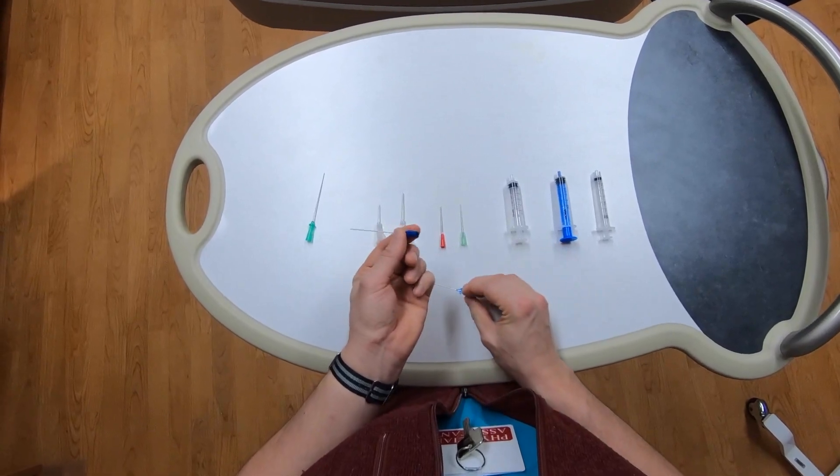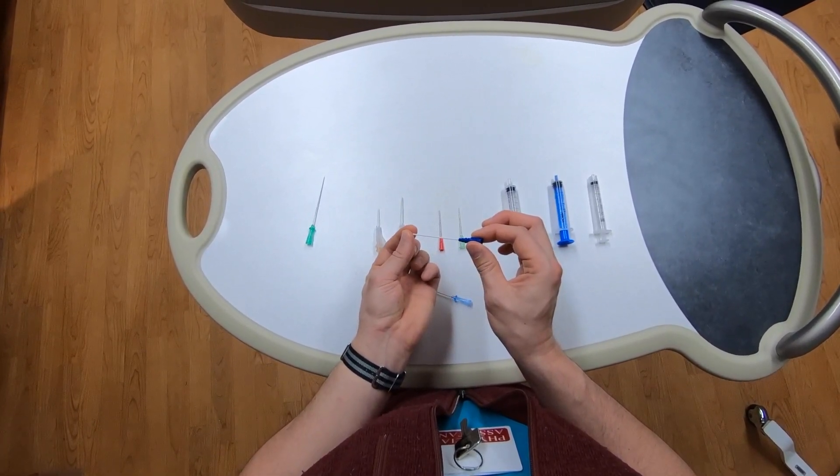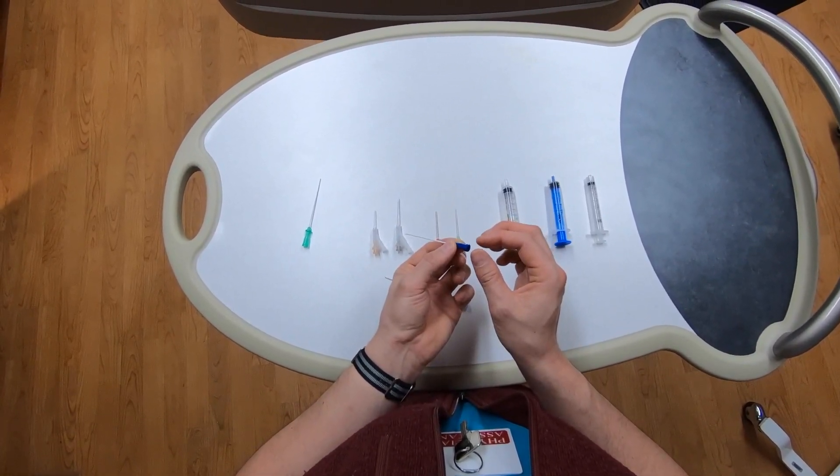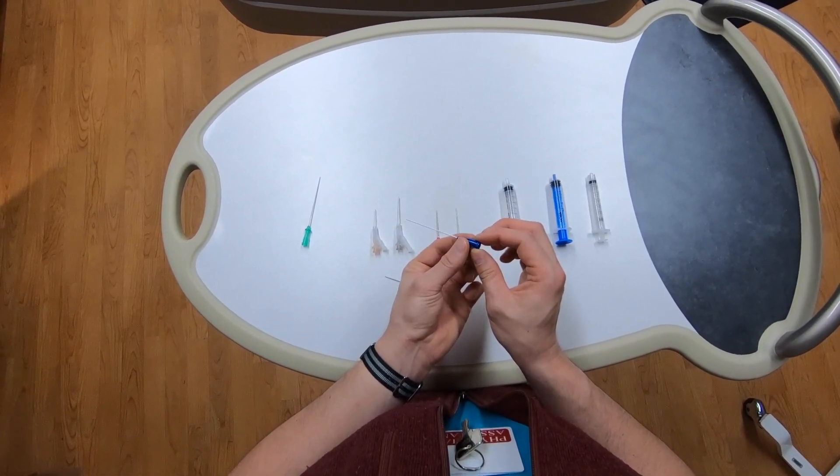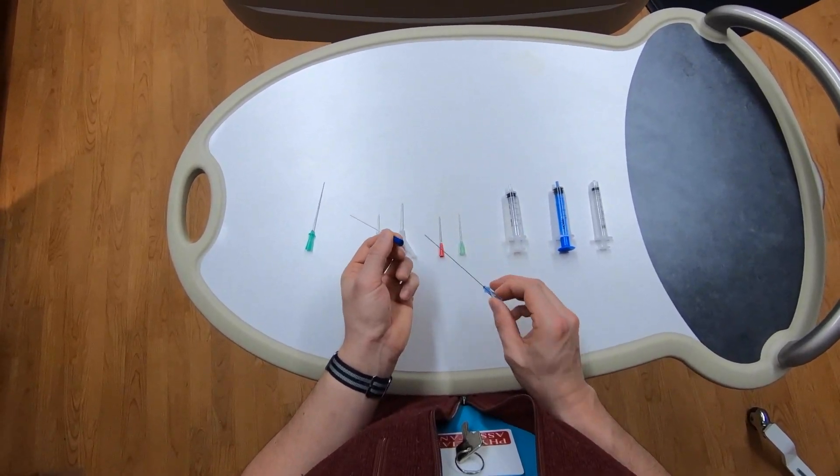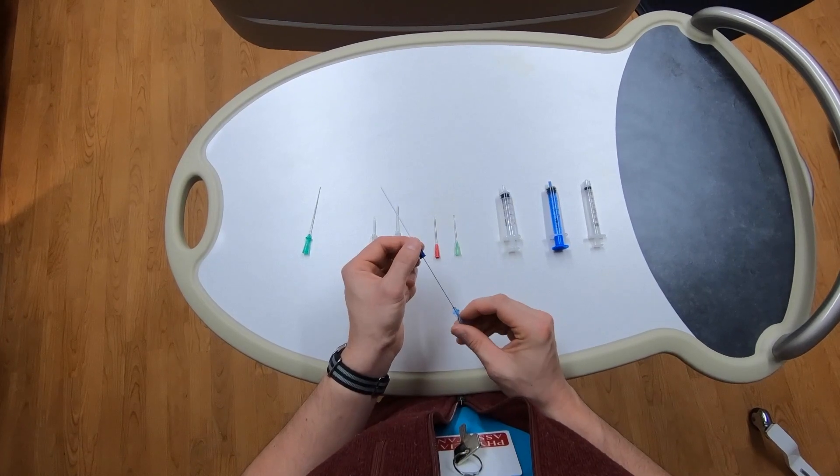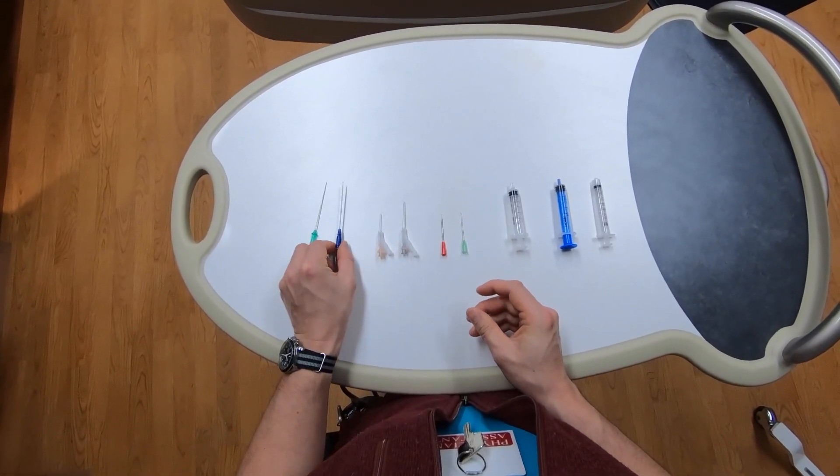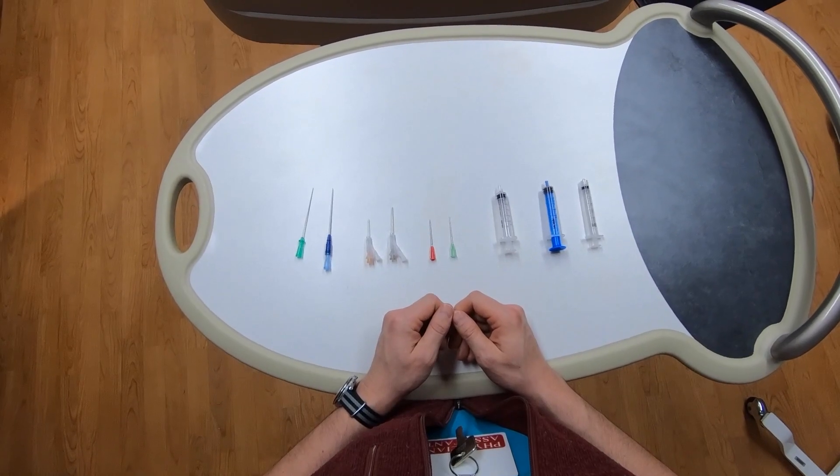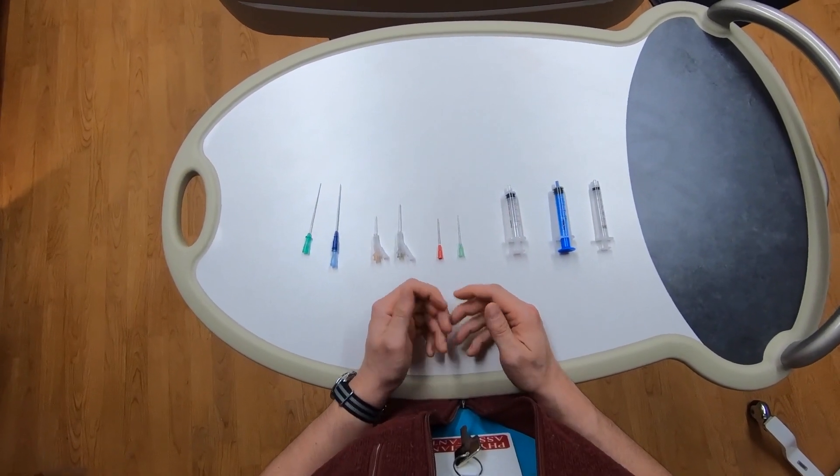After you remove the needle, you can leave it in place as a sheath, through which you can pass your guide wire, and not have to worry about maintaining it in place. This is an alternate technique you may find easier than stabilizing your needle while you pass your wire. I personally don't prefer it as a primary technique, and most providers I know don't, because it's not the most versatile.